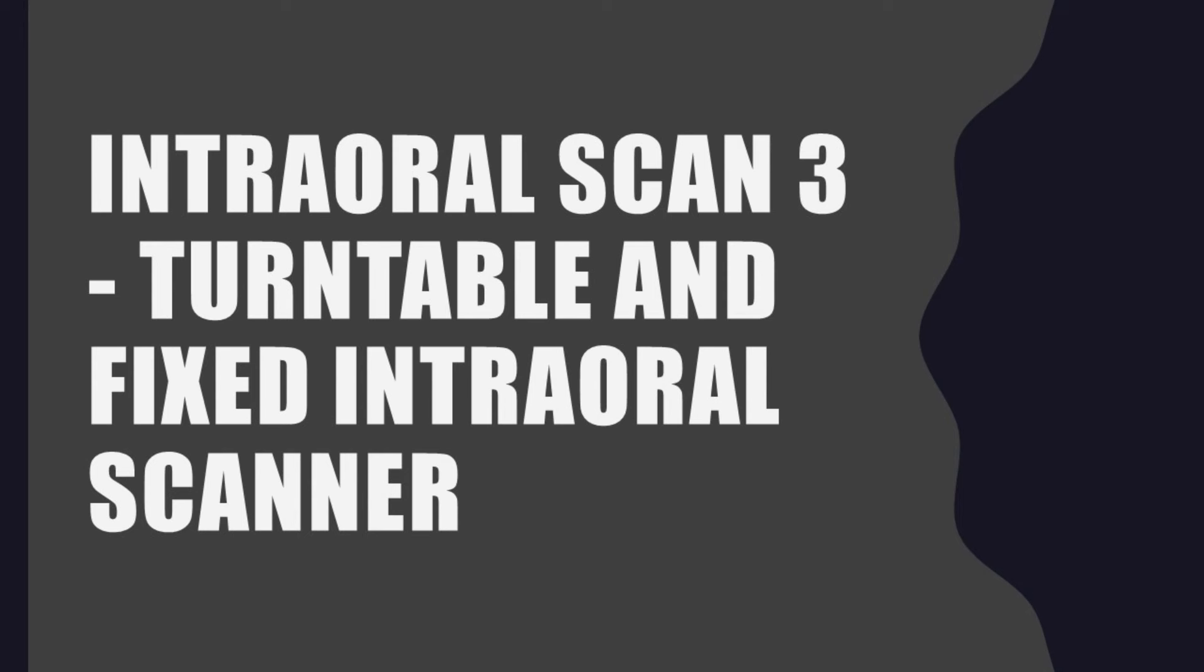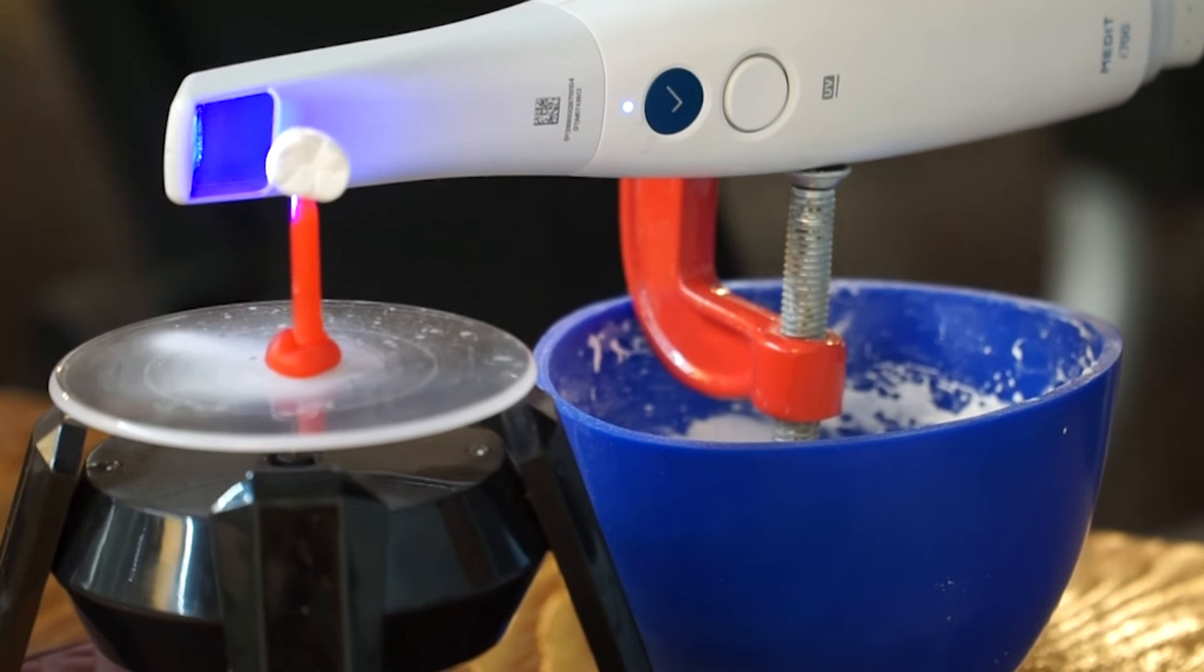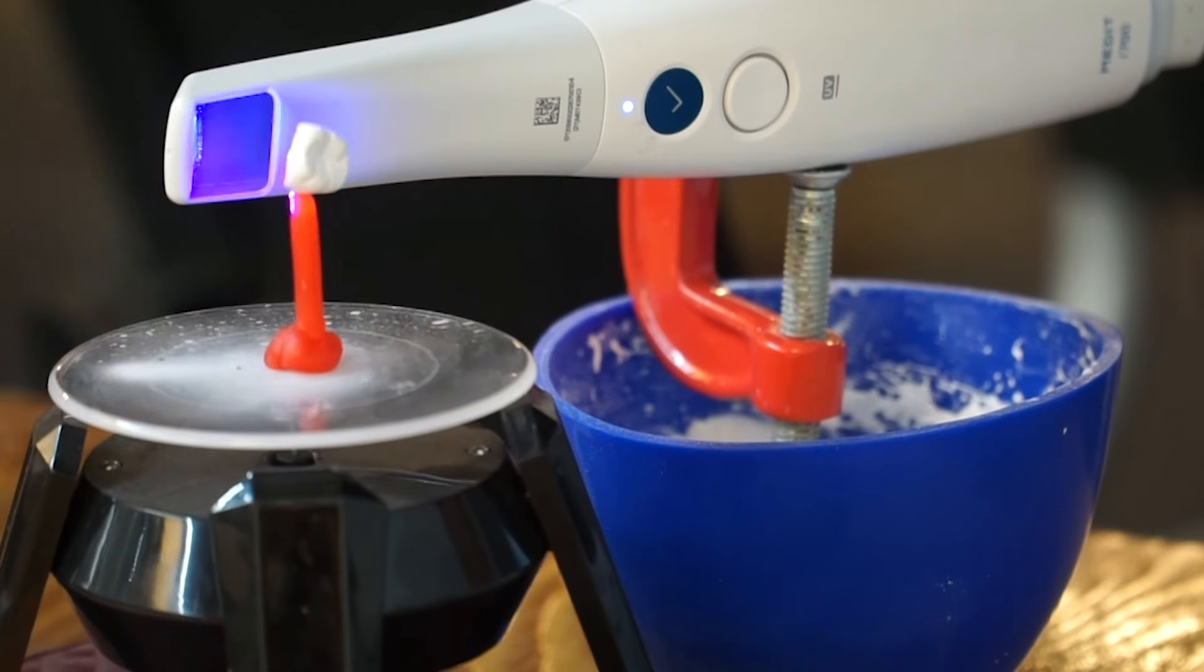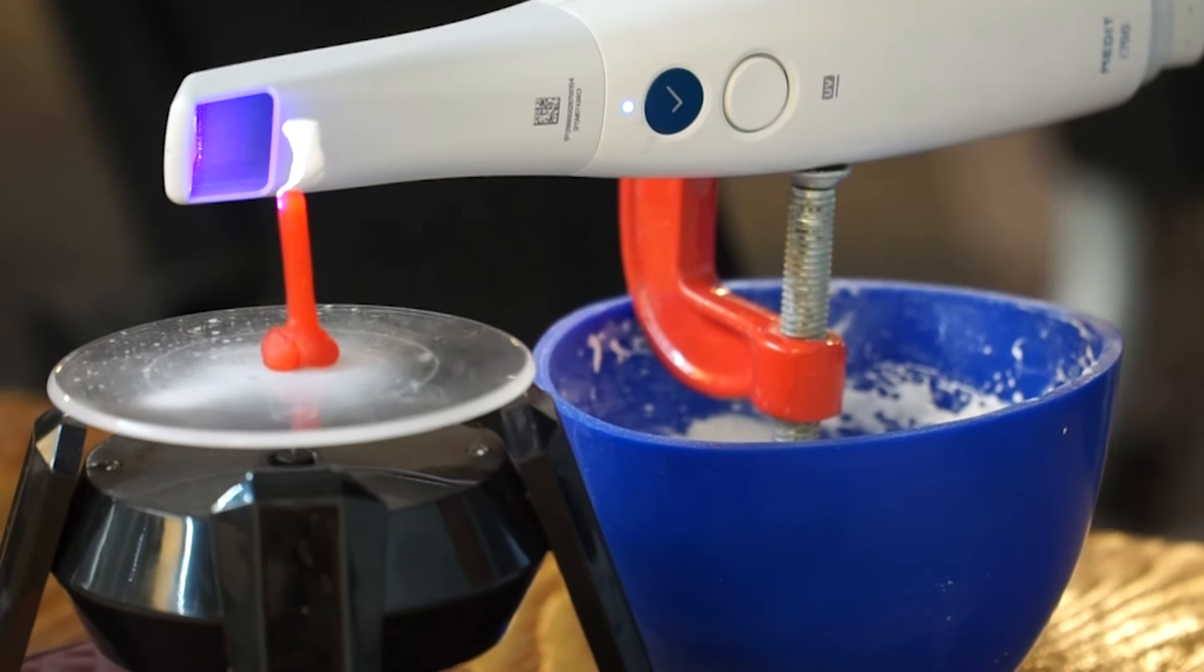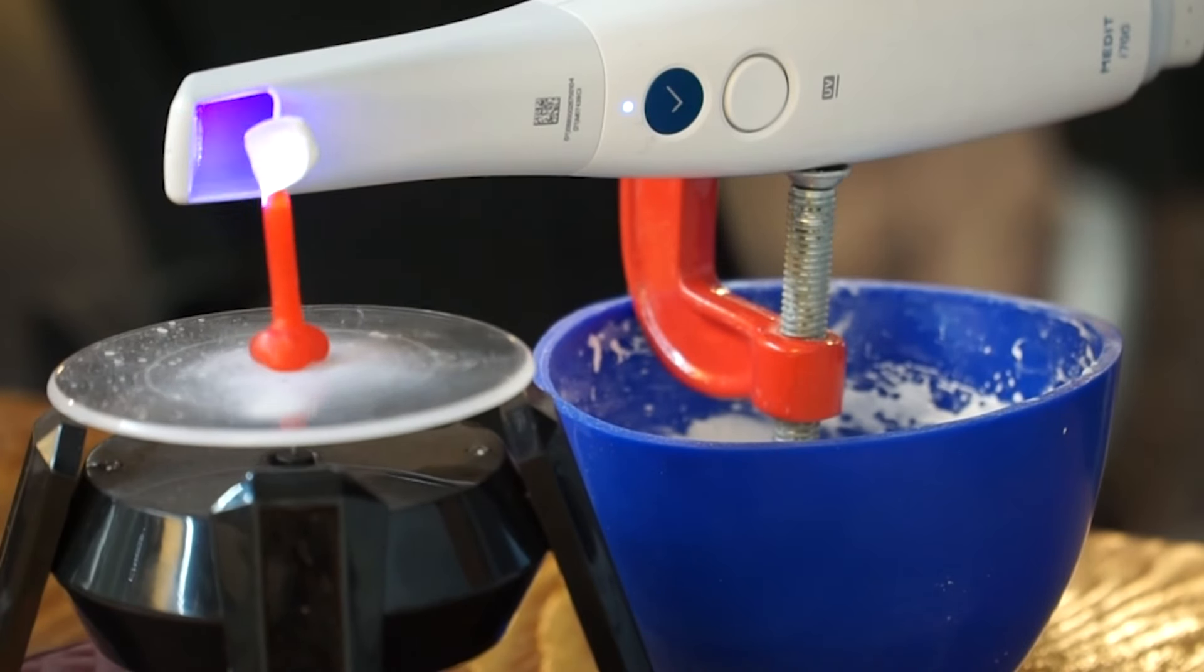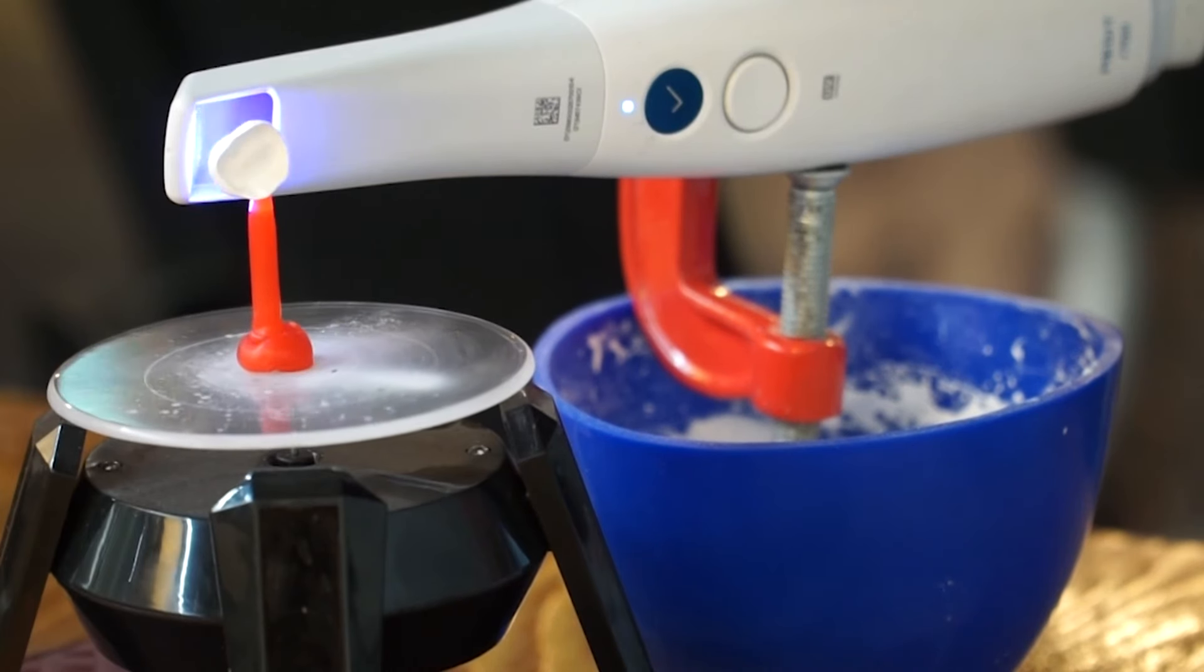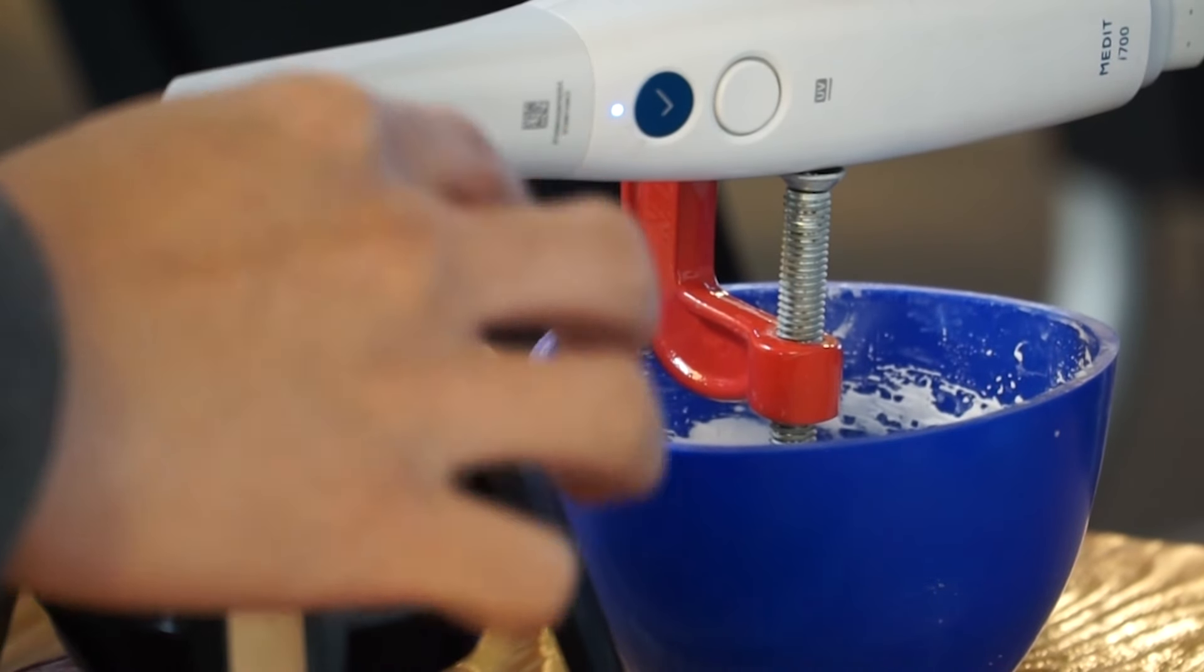At the margin area where the inner and outer surfaces of the crown join, the angle changes abruptly, making it more prone to error. As a result, the inner and outer surfaces are each tilted as they come together, even though there is little problem.